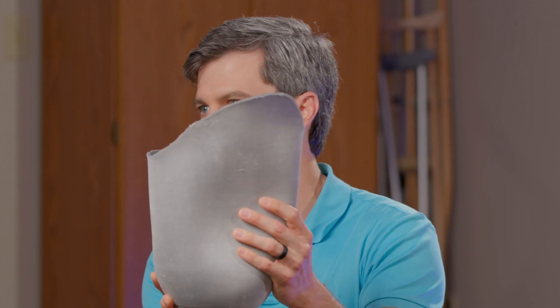Over the past 20 years or so, we've started incorporating silicone liners into the design of the prosthesis. The silicone liner provides a nice interface between your limb and the socket. It helps to protect your limb, it provides some cushioning, and it also helps to keep friction and shear forces off your leg, especially when you start to perspire. The liner rolls onto your limb and is attached by suction.